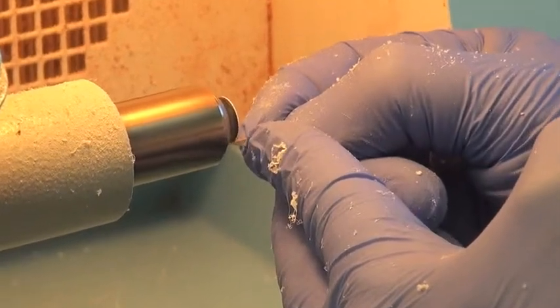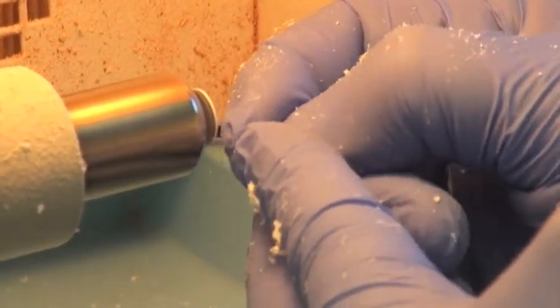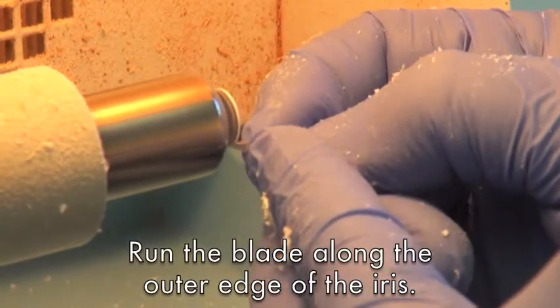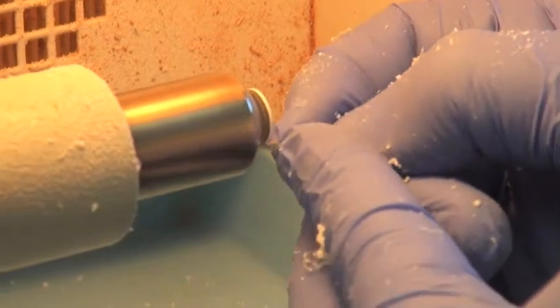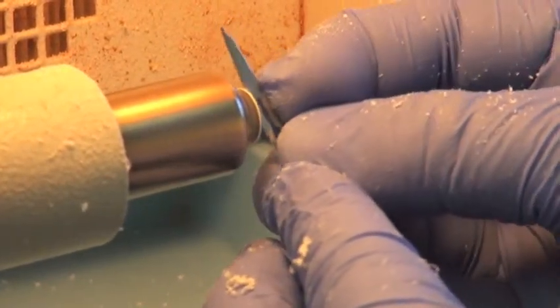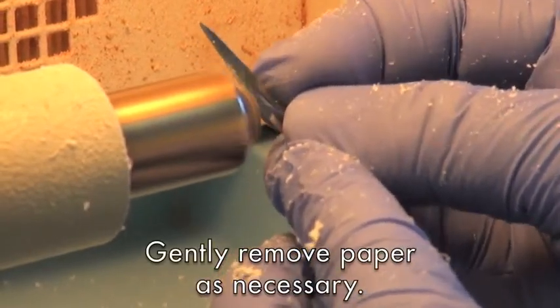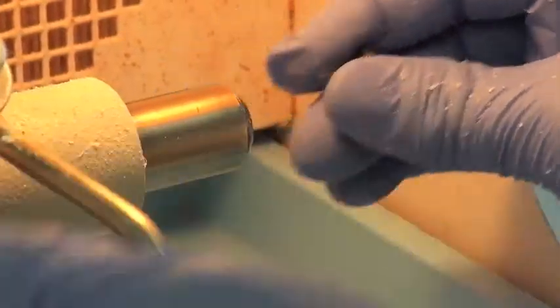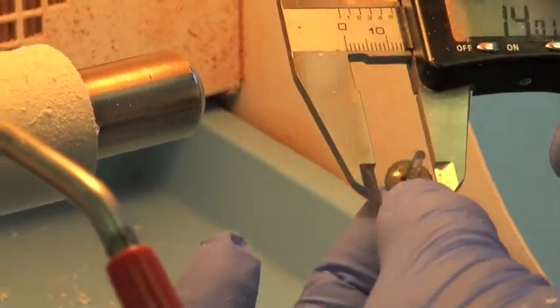So I will take a sharp blade and just start to taper down this diameter. We're shooting for about an 11 millimeter diameter. And again, I'm flipping the blade over and just taking off any paper that has ruffled on the back.